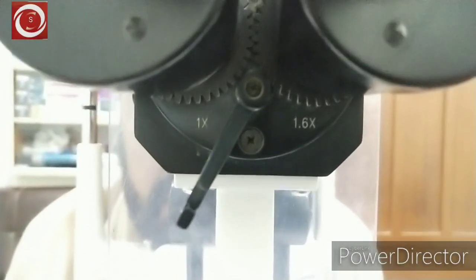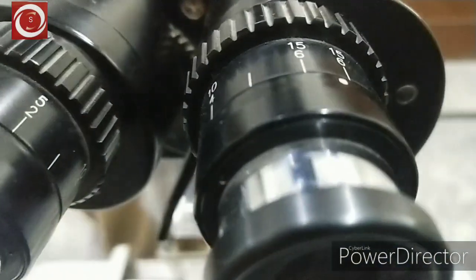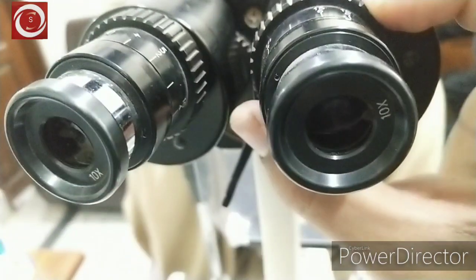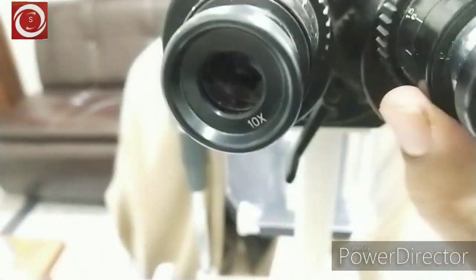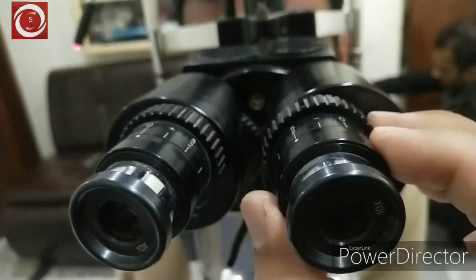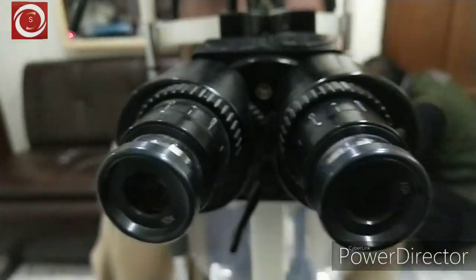10x and 16x magnification — first 10x. Then comes the eyepieces. You can see here it's on 0 and here it's on 6, so that's why you have to adjust them according to your refraction, or set both to 0. We are making both 0 now because I'm emmetropic.